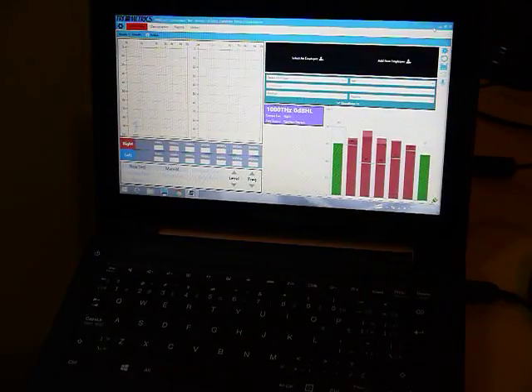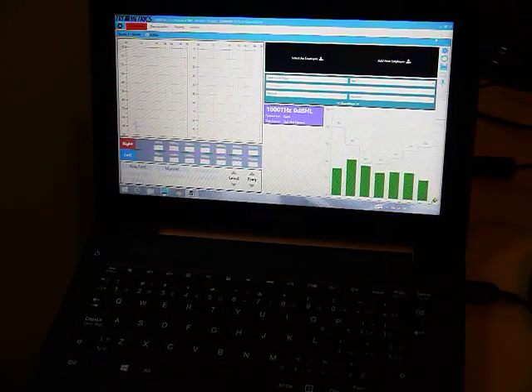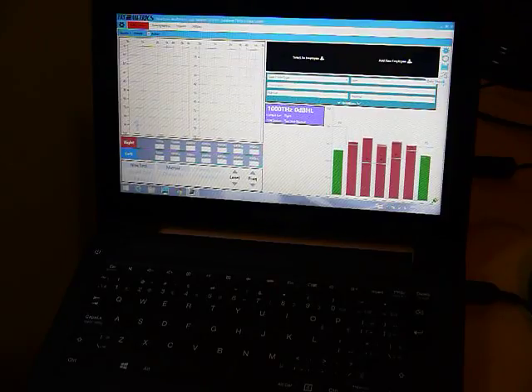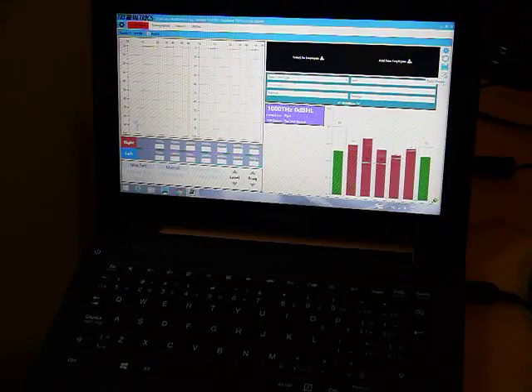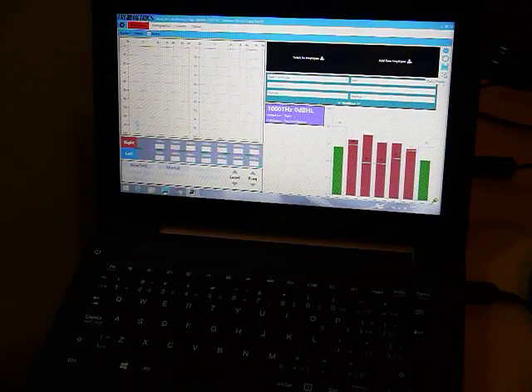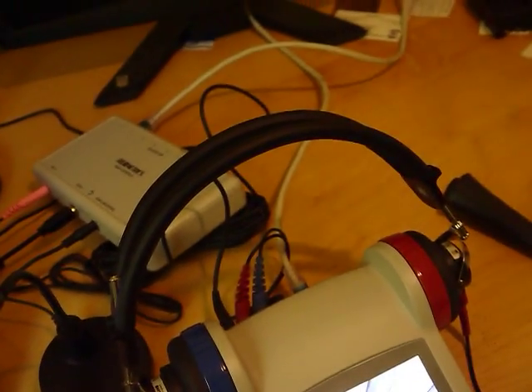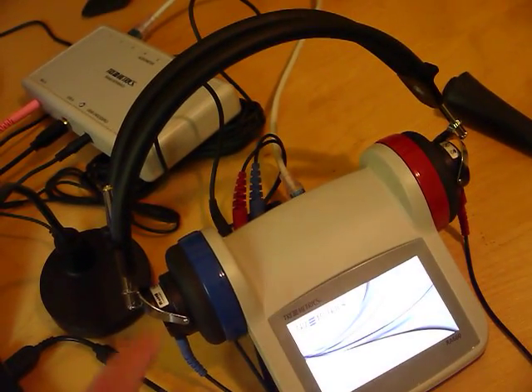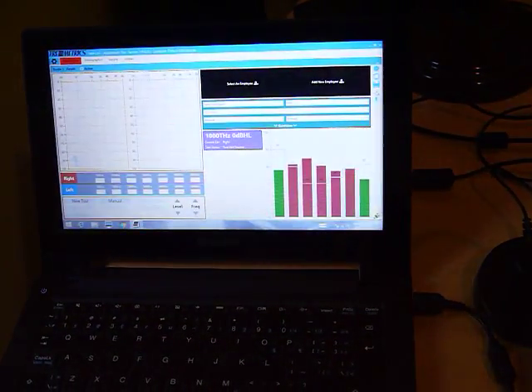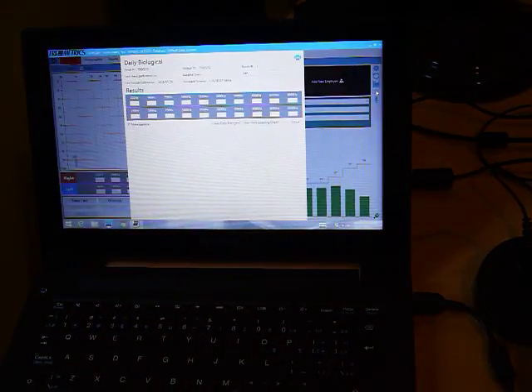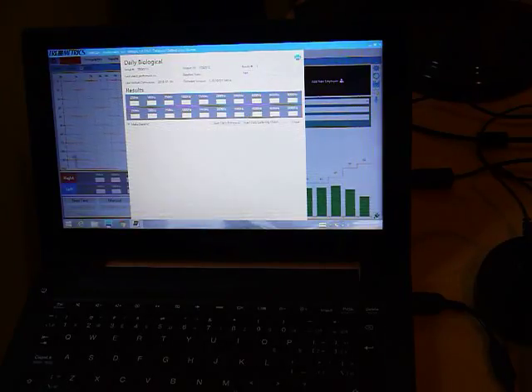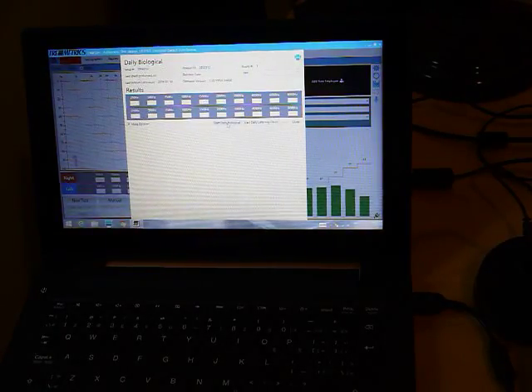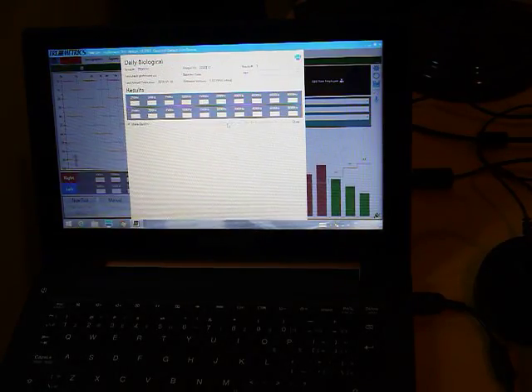First thing, if I want to do my daily check with this. There's also a bioacoustic simulator which can test the headphones. They're in place right now on the unit. So if I want to do that, I can click it and start my daily biological. I'll just show you that for a second.